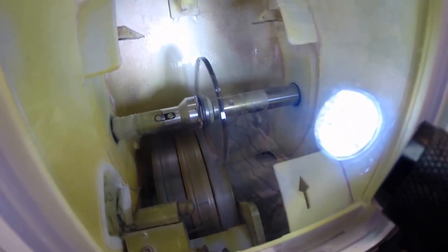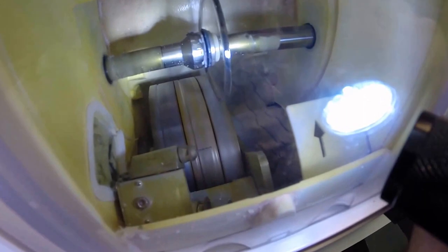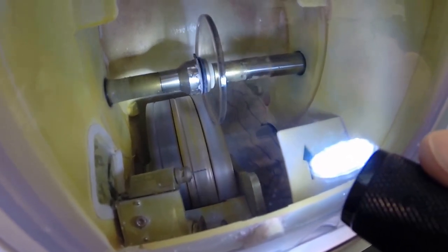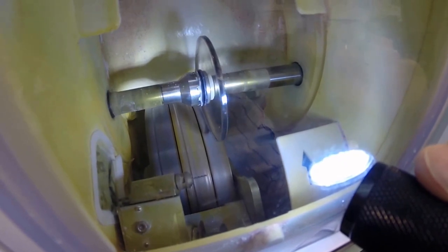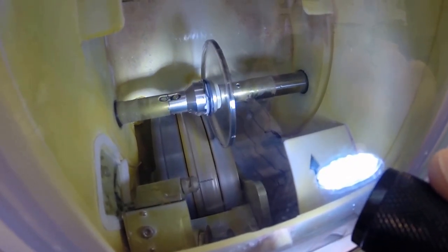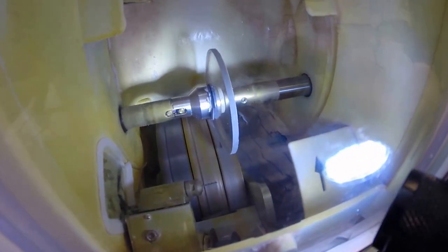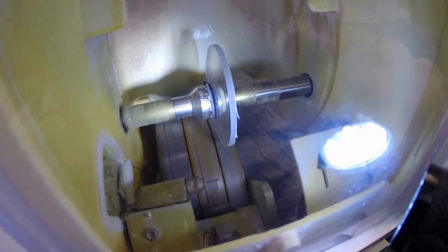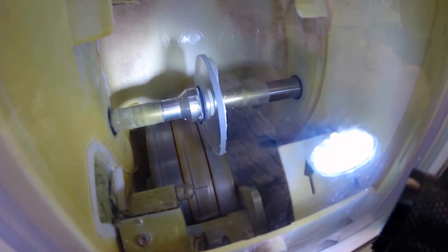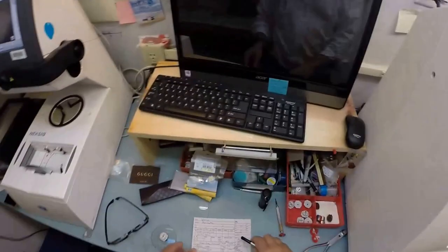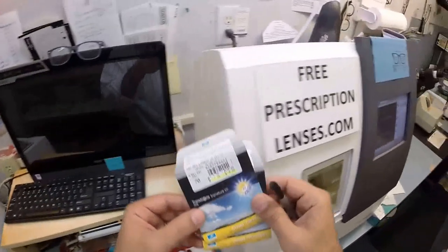If you see light flickering in the background, that is water running. It's only there to catch the optical sawdust. Polycarbonate cuts dry, where plastic and high-index lenses cut wet. Just a moment, you will see the lens as it touches down onto the cutting wheel. And it looks like it's snowing. That is your polycarbonate material cutting away.